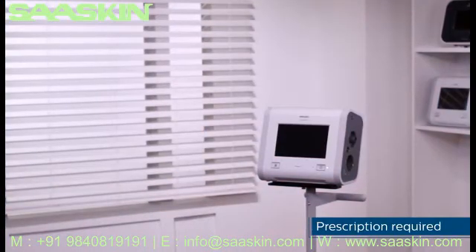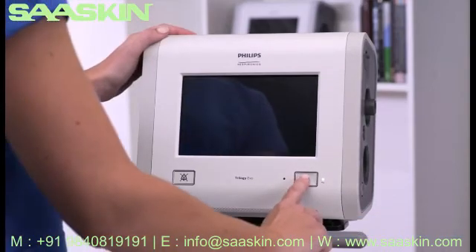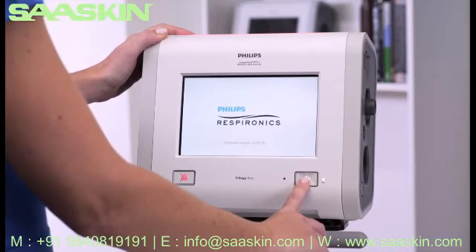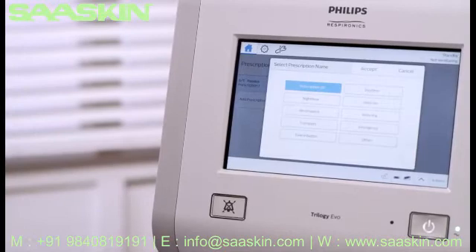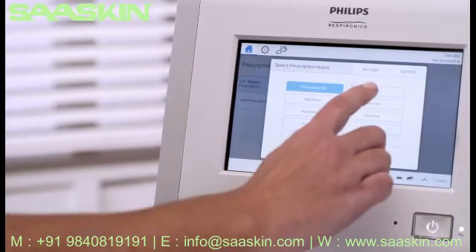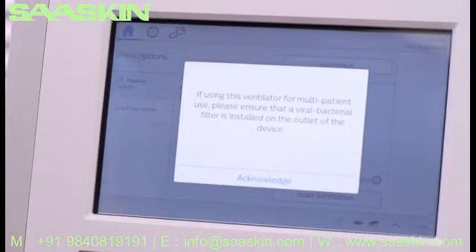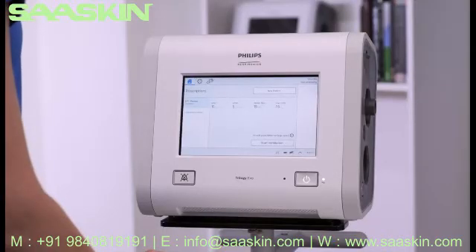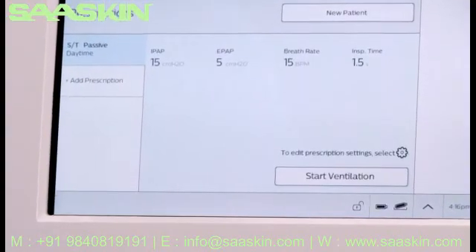Let's go through the easy setup of a new patient on Trilogy EVO. Begin by turning on the device. From the home window, tap New Patient — this clears all pre-existing patient data. Choose your preferred prescription name from the table and tap Accept. Read and acknowledge the statement. If the appropriate patient circuit is attached and you want to ventilate with the pre-programmed settings, you can begin therapy by selecting Start Ventilation.